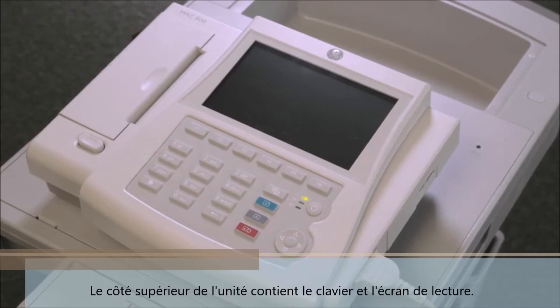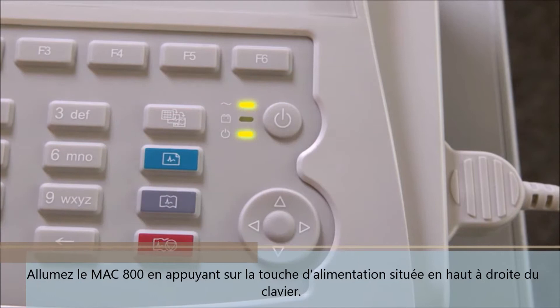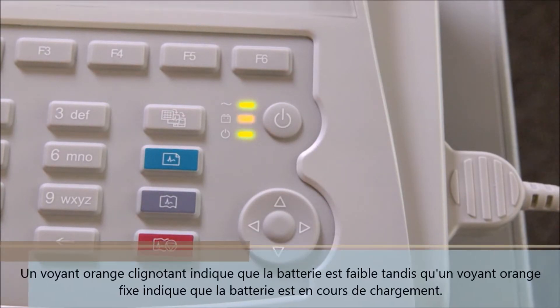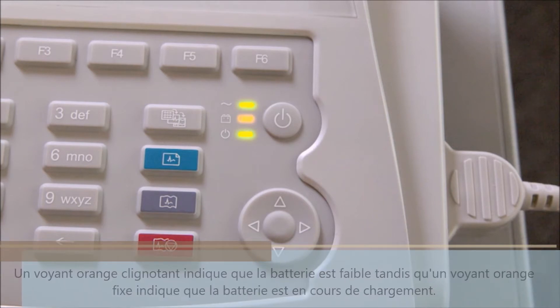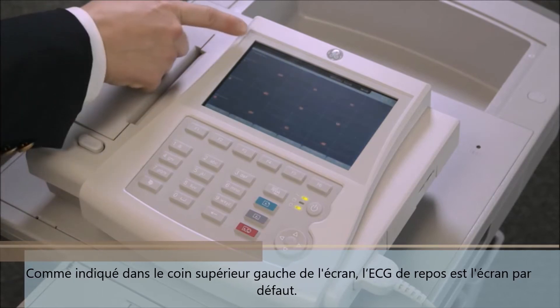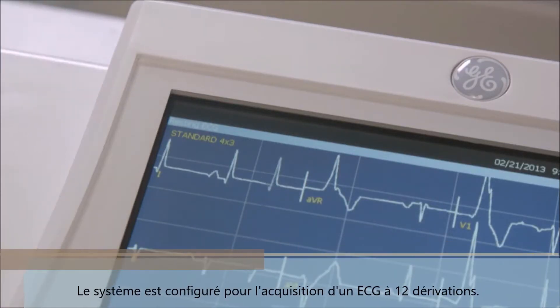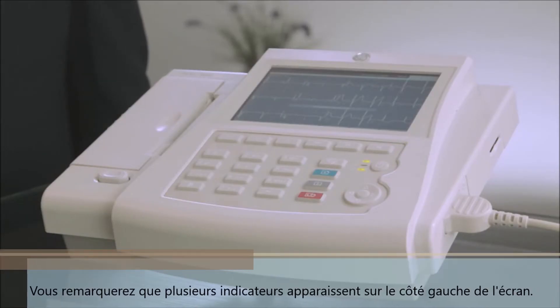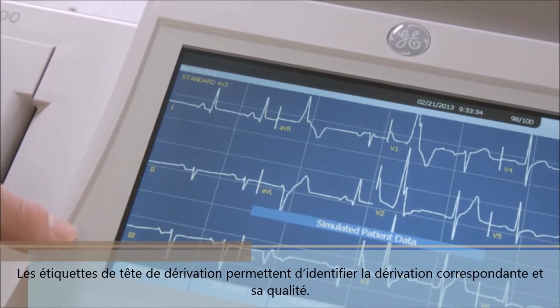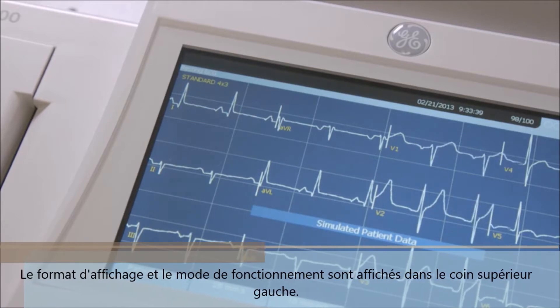The top surface of the unit contains the keyboard and display screen. Turn the MAC 800 on by pressing the power key on the upper right side of the keyboard. A flashing amber light indicates the battery is low, while a solid amber light means the battery is charging. The resting ECG screen is the default screen as noted in the top left-hand corner. The system is set for acquiring a 12-lead EKG, and several indicators appear on the left side of the display screen.